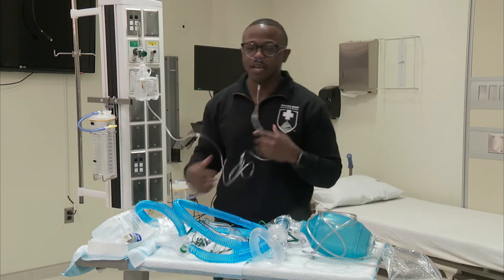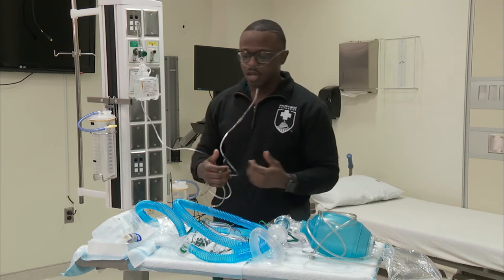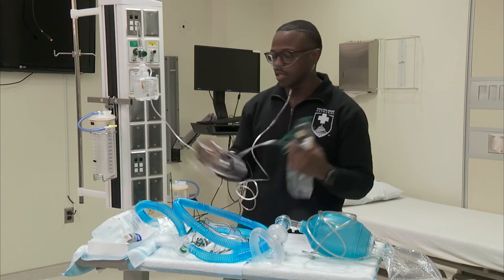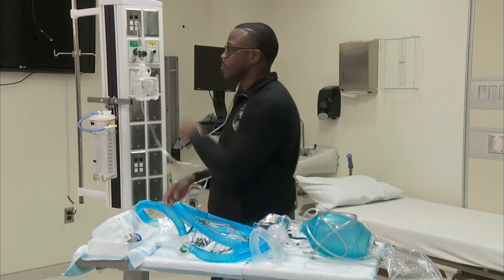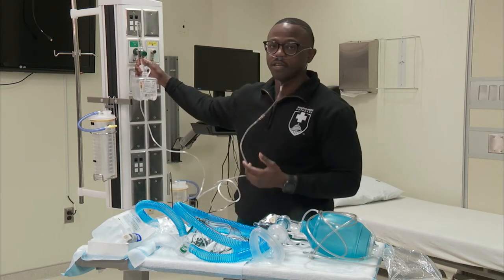Something commonly — common mistakes I've seen with the bubble humidifiers: when you're in a pinch and you need to grab another oxygen device like a non-rebreather or an Oxymask, don't attach it directly to the outside of the bubble humidifier. Turn off the flow meter, remove the humidifier, and then attach your device.